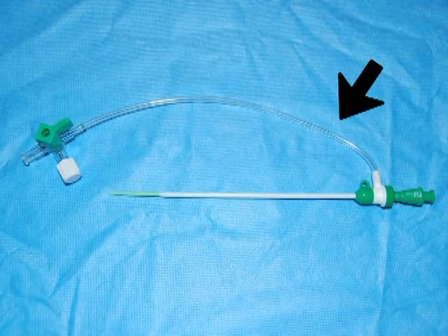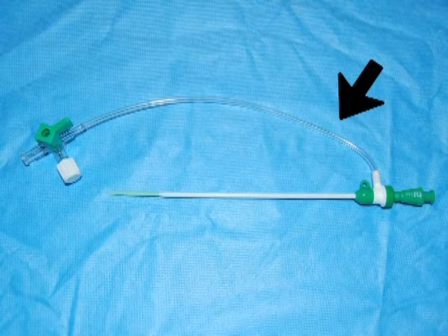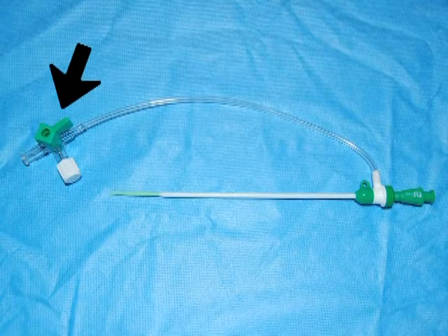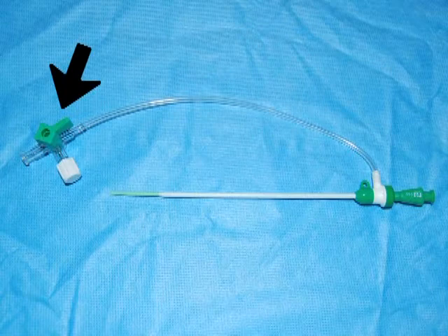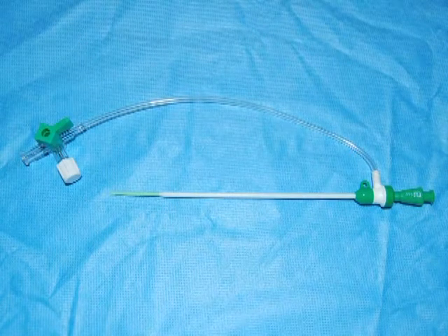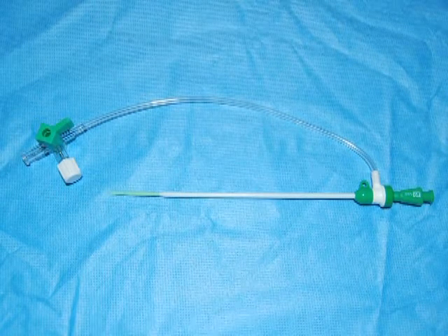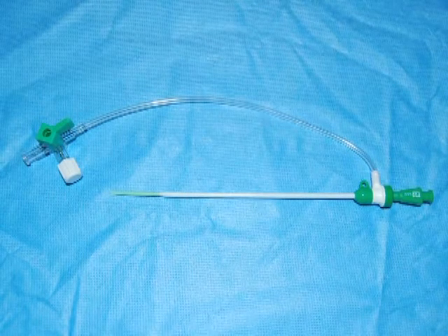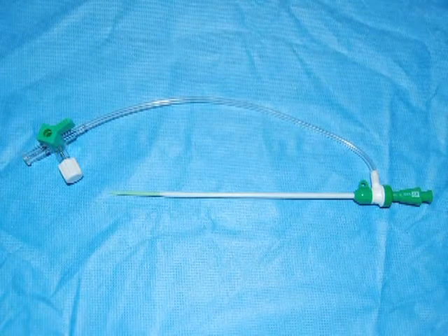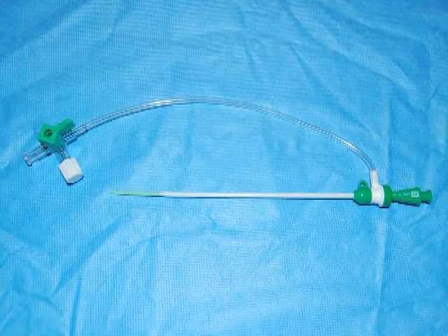Attached to the side of the valve is the side arm, which can be used to flush the sheath. It has a stopcock at the end to control bleeding or permit introduction of medications. These sheaths are flexible and strong but can be kinked if flexed to too great a degree, and they are generally coated for easy entry and safety.